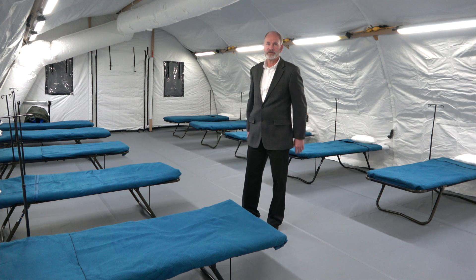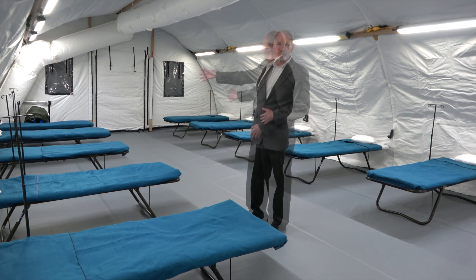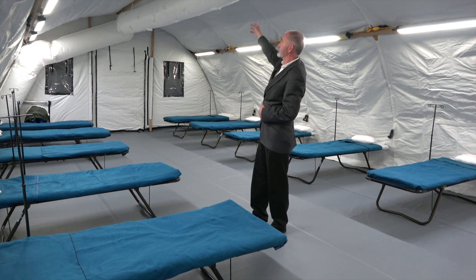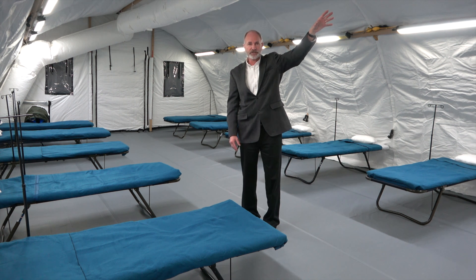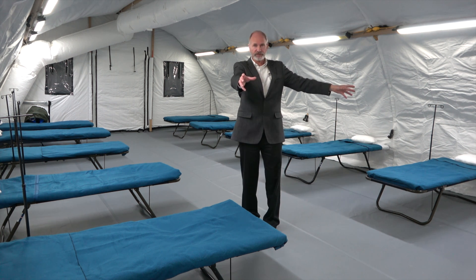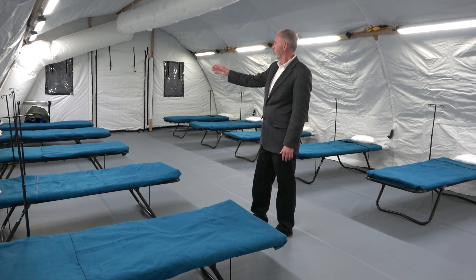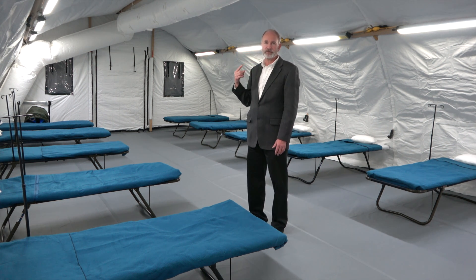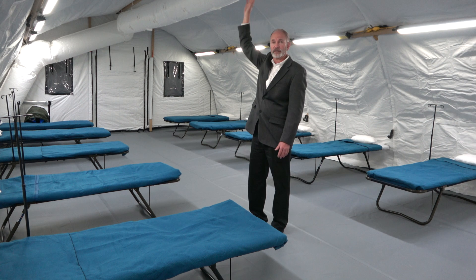We've now entered the patient isolation area. This is where your infected patients would be housed. The air-conditioned air is coming in through the distribution plenum that runs down the center of the ceiling and continues on past the isolation partition. Return air then comes back from the anteroom through two vents and goes back to the air conditioning unit through the return air duct. All of the air that circulates through this area has passed through the HEPA filter and through the germicidal filter, so it's all clean air coming in through this duct.